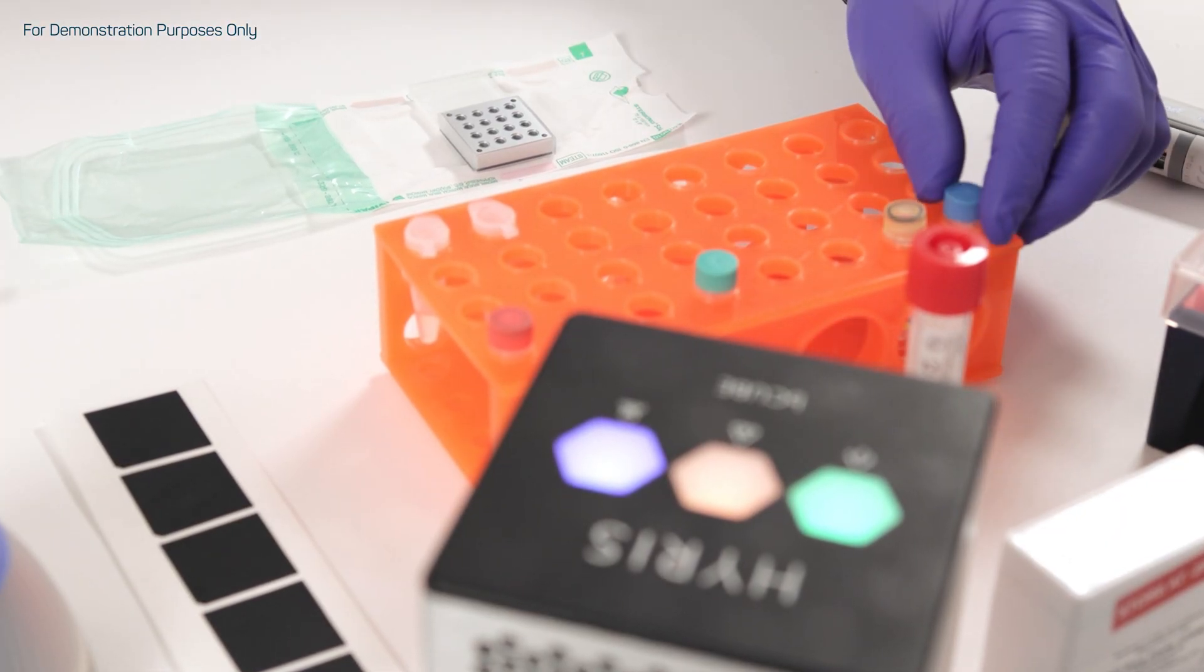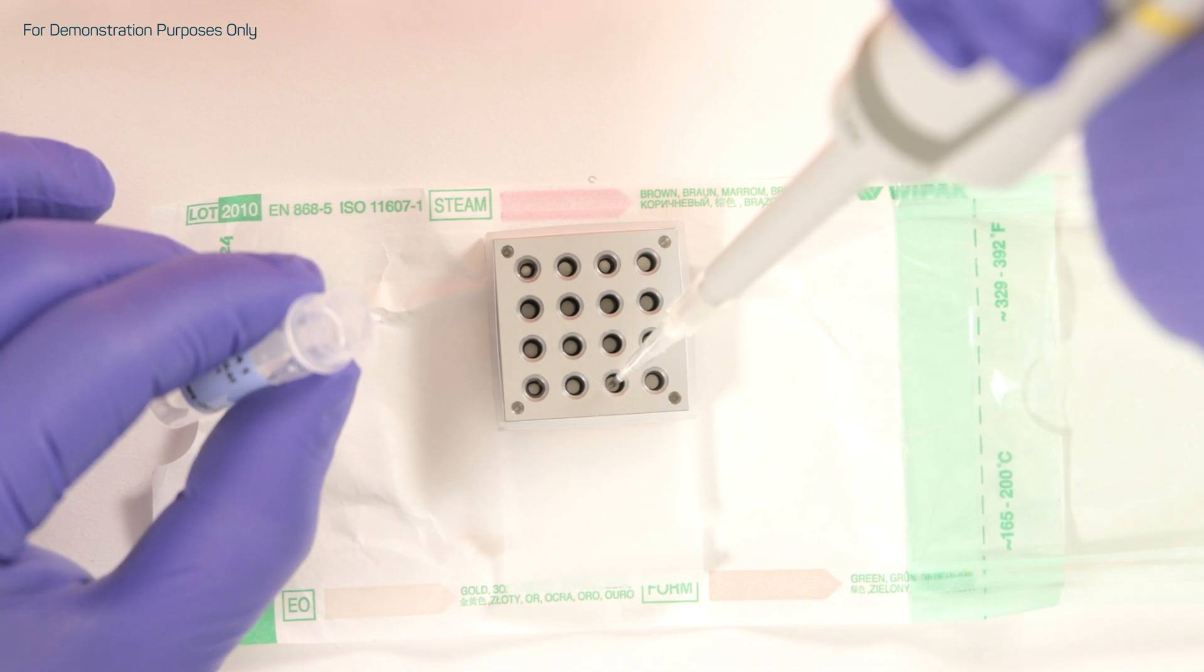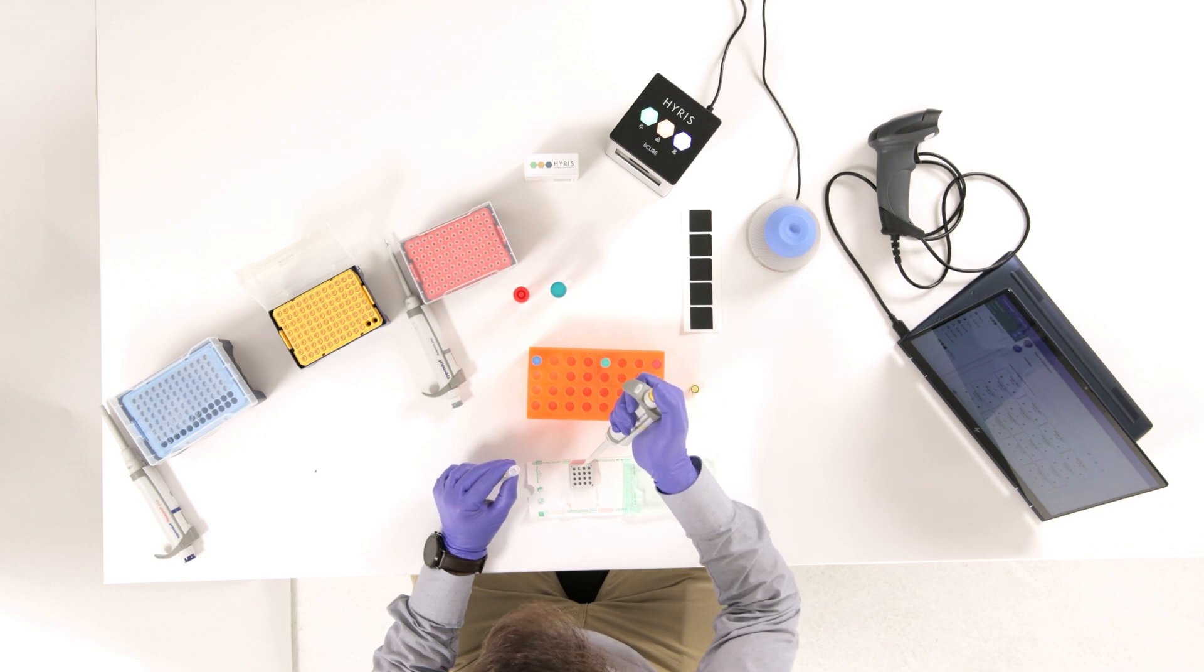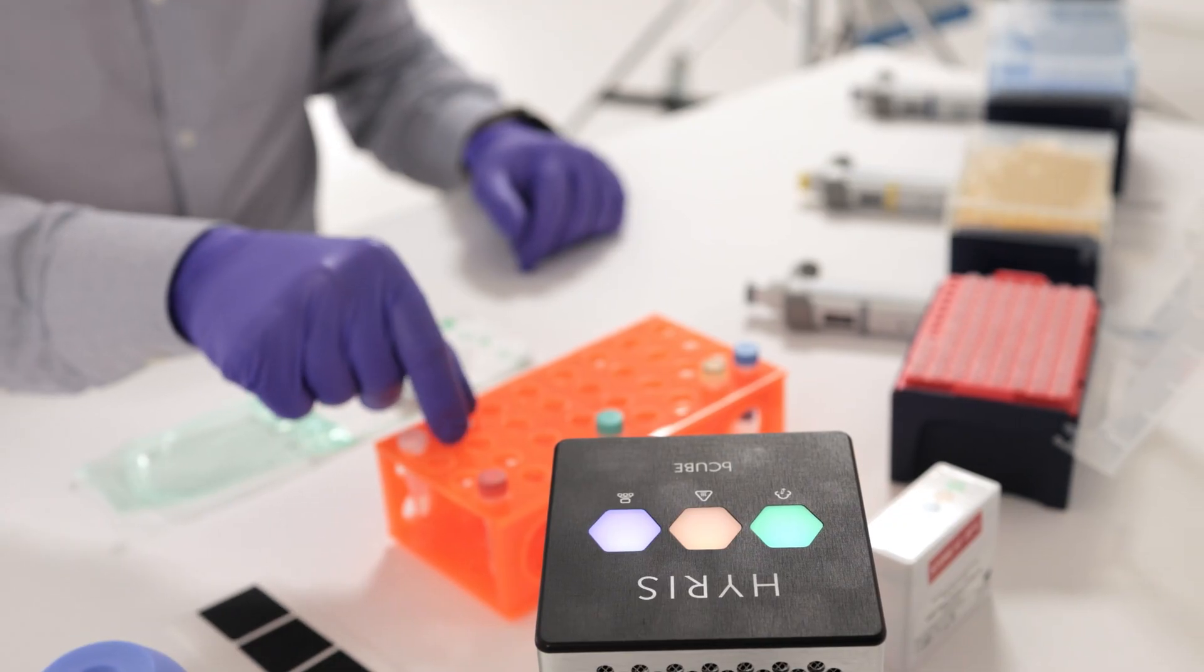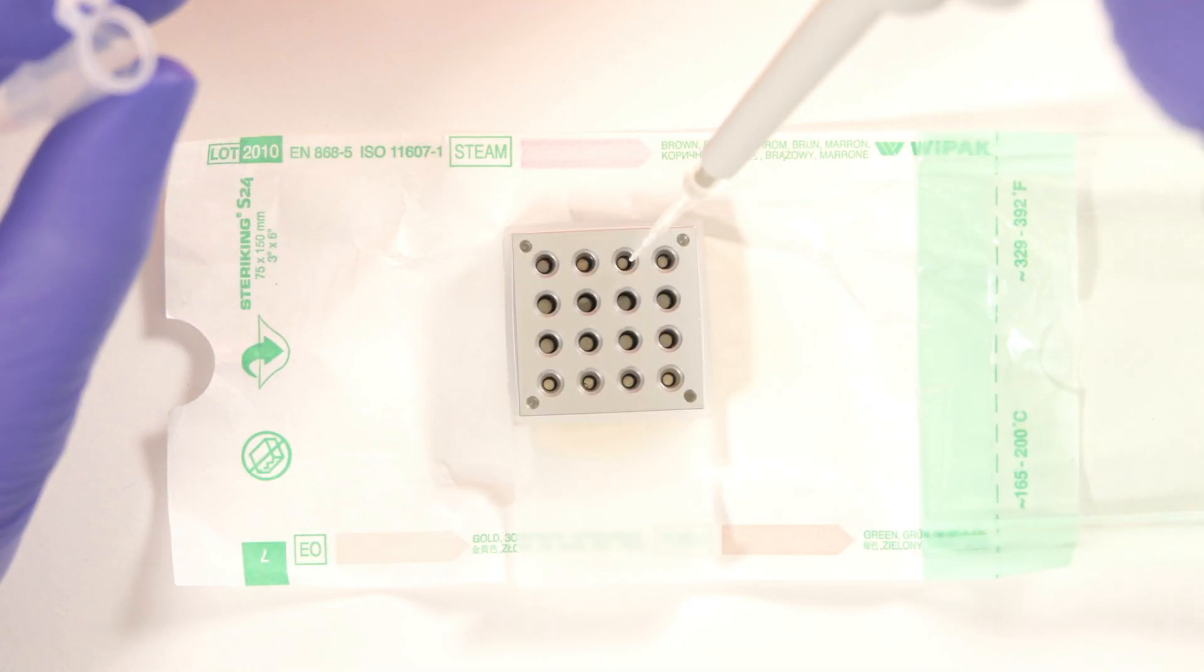Once the new HiRIS cartridge is opened, the first step involves loading the two mixes of reagents within their wells. These are the reagents able to detect the presence of SARS-CoV-2 RNA in a human specimen. Samples are added to the reagents for each well.